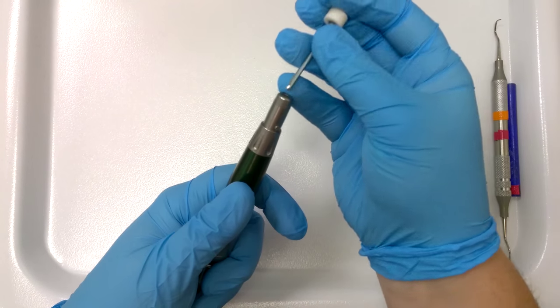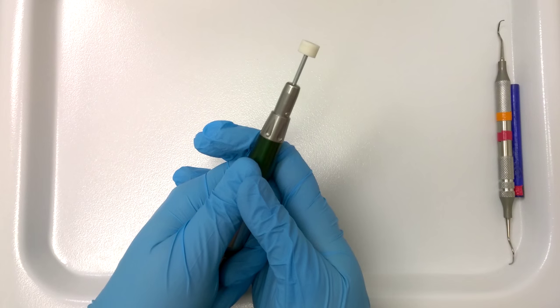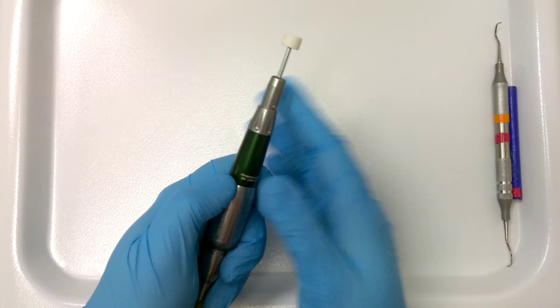So what you do is you just put lots of pressure in your slow speed handpiece and that will just snap in place and it's ready to use. So you're going to use the rheostat.